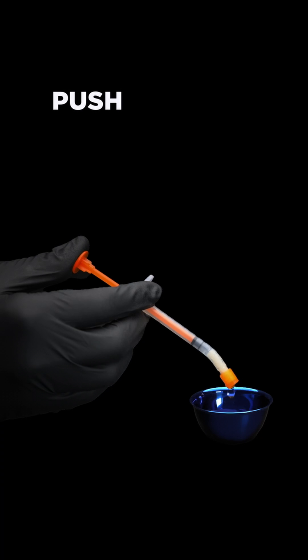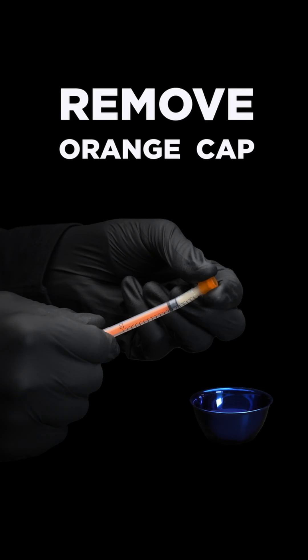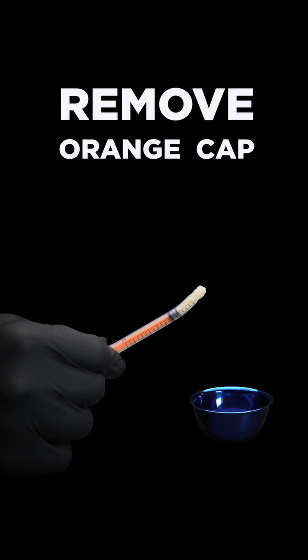Push the plunger inward to remove excess liquid. Holding the syringe applicator side up, unscrew the orange cap counterclockwise and discard.